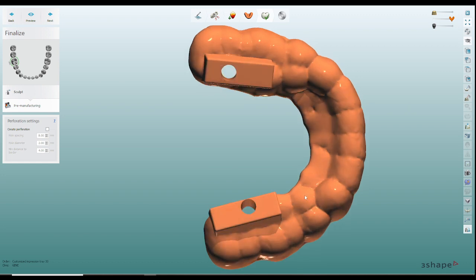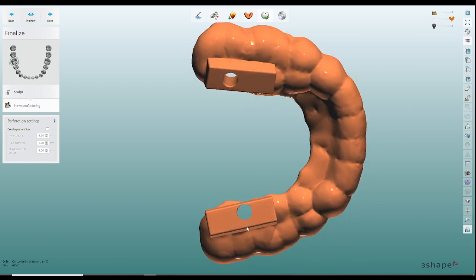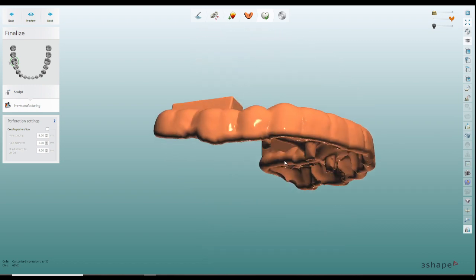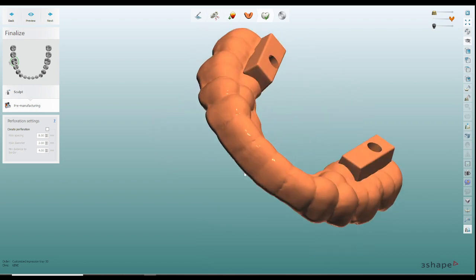Now once the case is processed all I have to do is just place this right on top and drill right through and it'll get me right to that access hole. Where I generally place a little bit of blue silicone before I start processing that way I can just easily grind down and once I hit silicone I know to stop and then just pick it right out and I have the perfect size access hole for my hybrids.